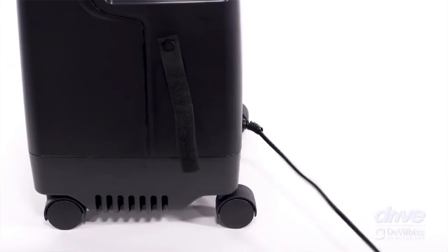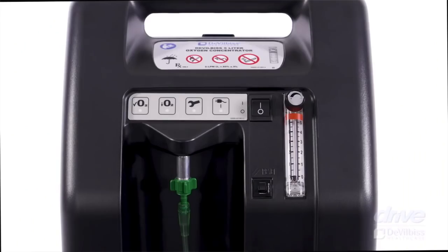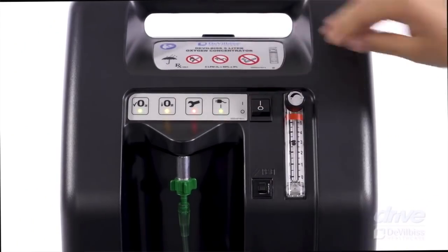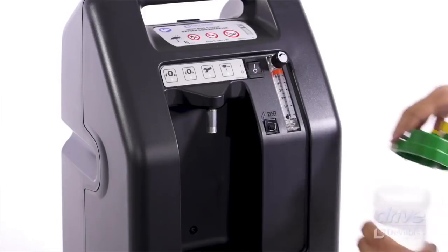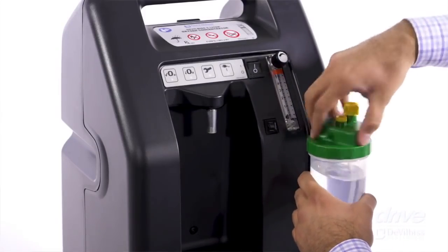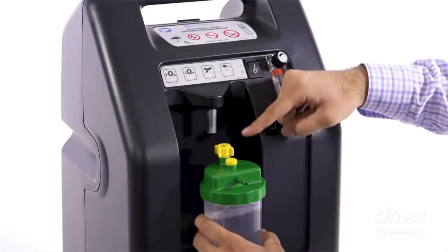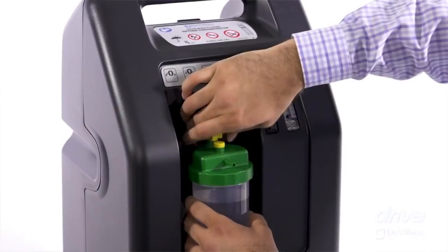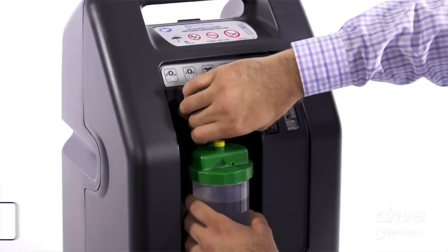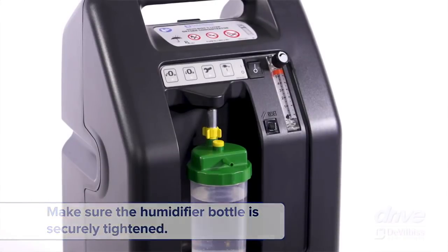Once you have given the person oxygen, we expect levels to go above 94%. How do we use an oxygen concentrator? It is very simple — it works on electricity, so it has to be connected and switched on. Humidification is provided by filling a bottle with distilled water and connecting it. You can see the oxygen bubbling when you set the rate at 1, 2, 3, or 4 litres. Most concentrators provide up to 5 litres per minute, though high-flow ones go up to 10 litres per minute.